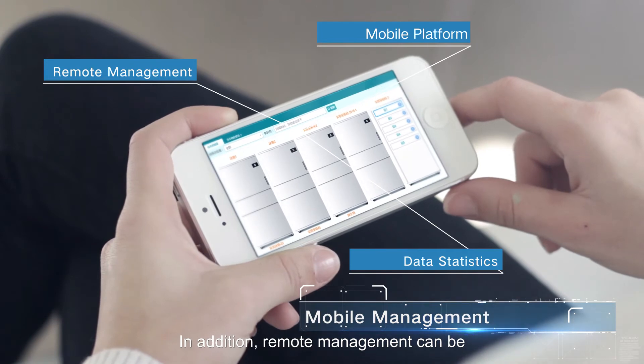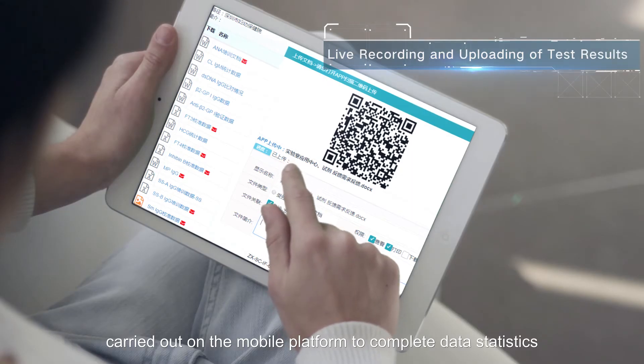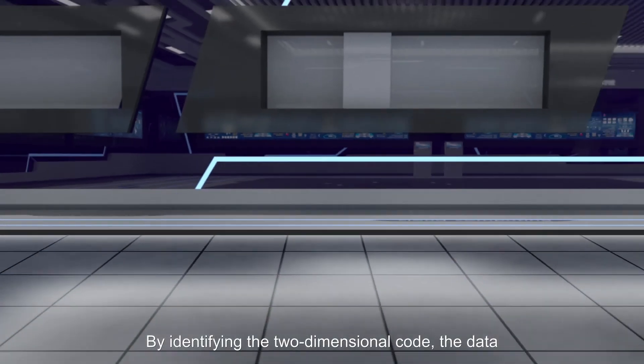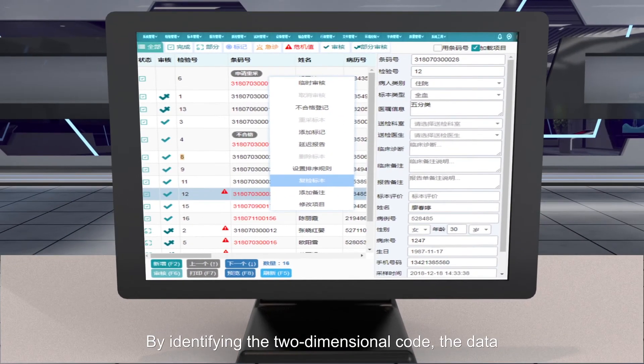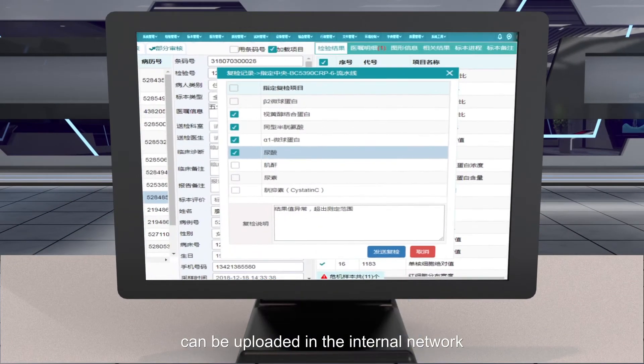In addition, remote management can be carried out on the mobile platform to complete data statistics. By identifying the two-dimensional code, the data can be uploaded in the internal network.